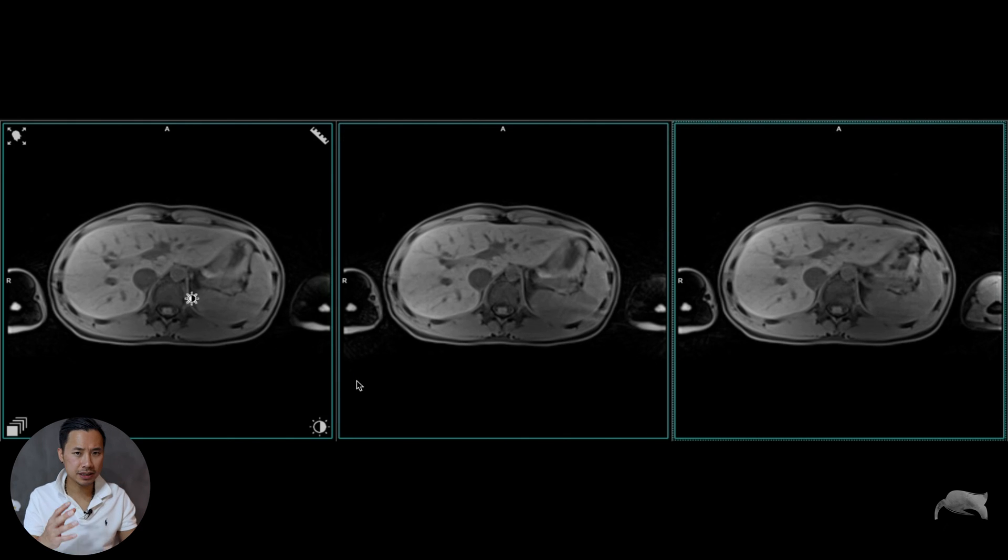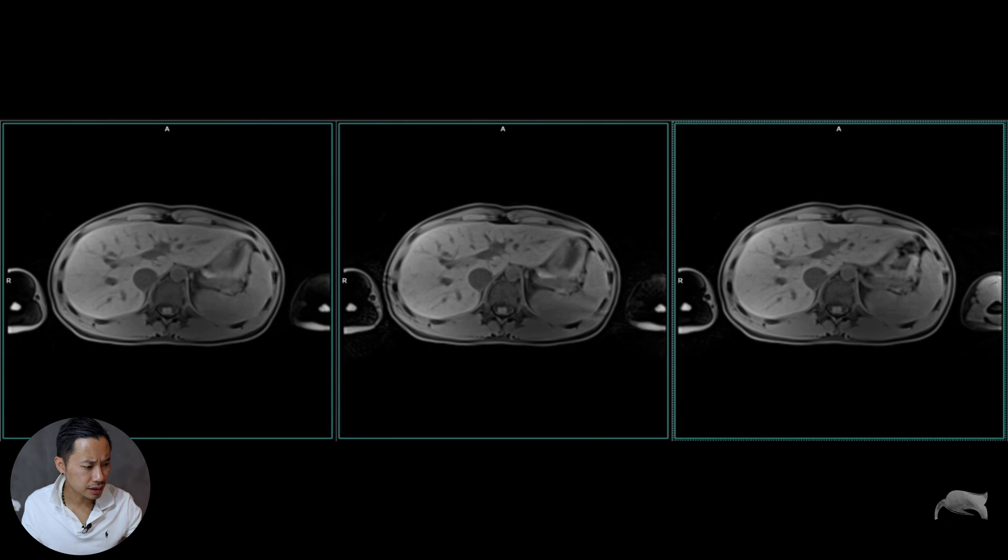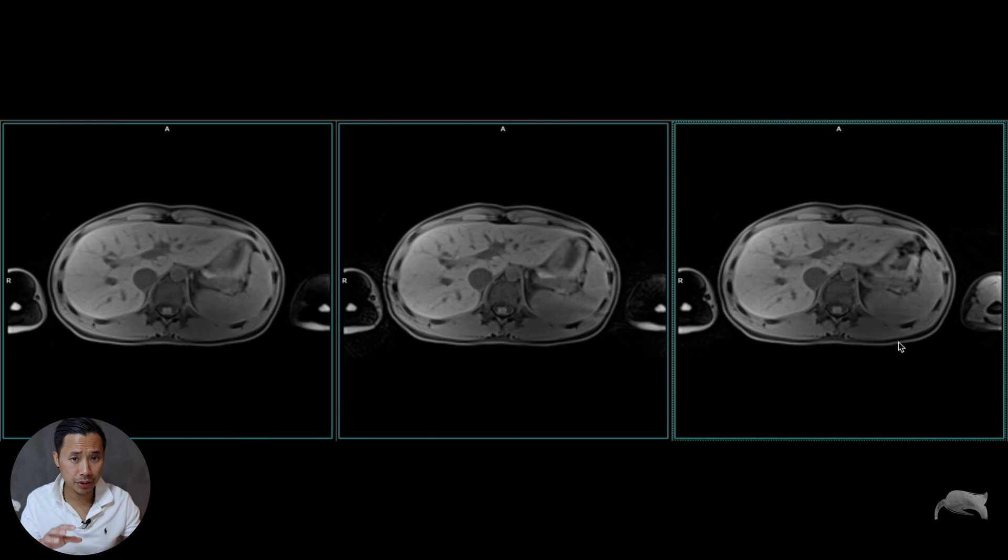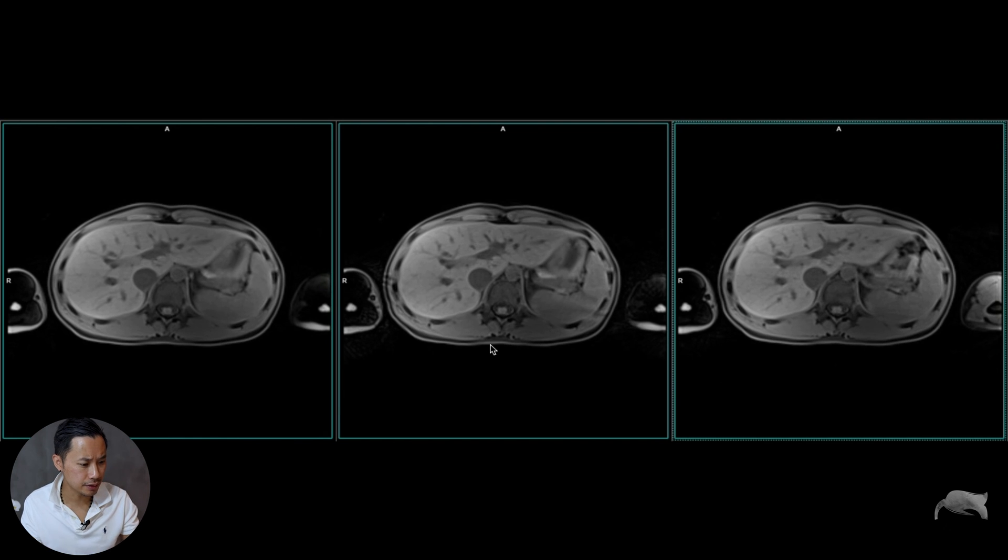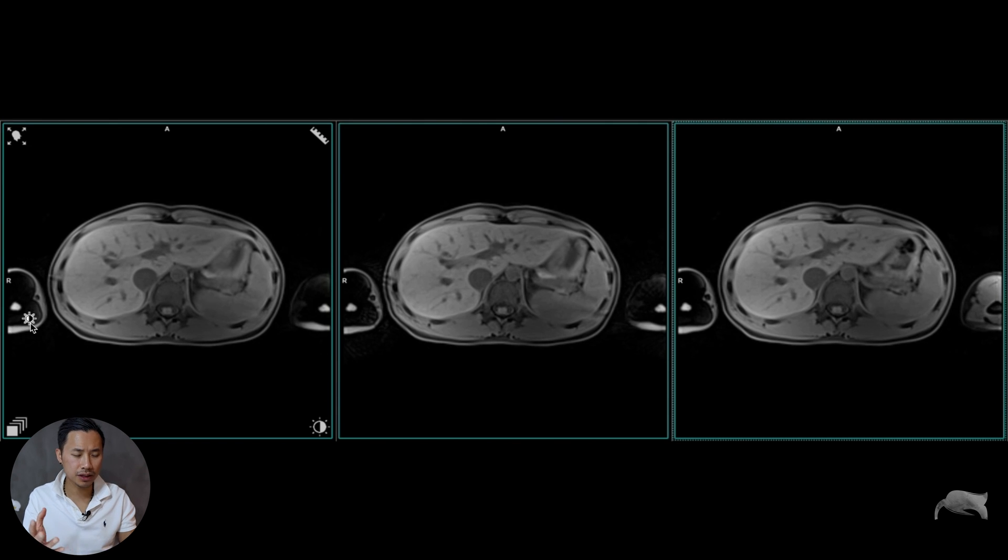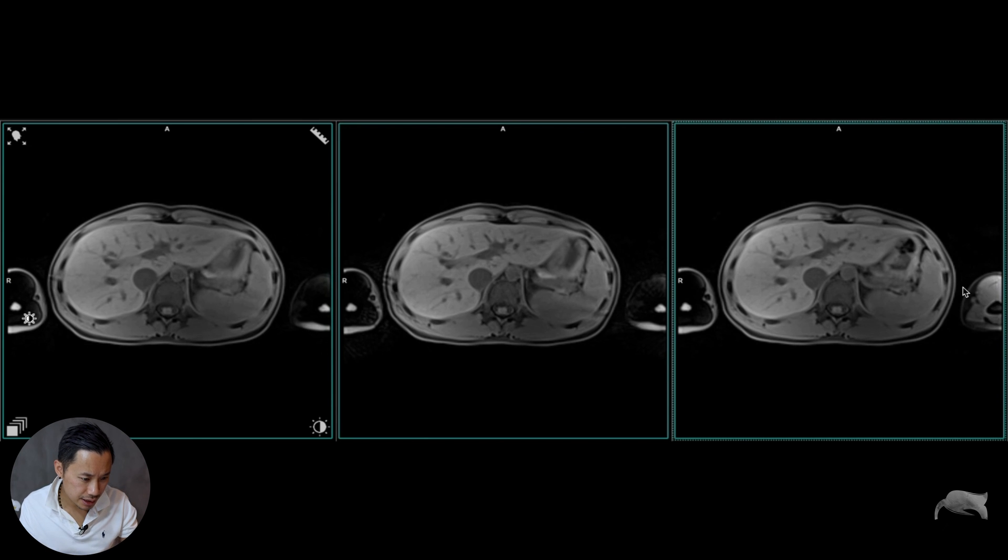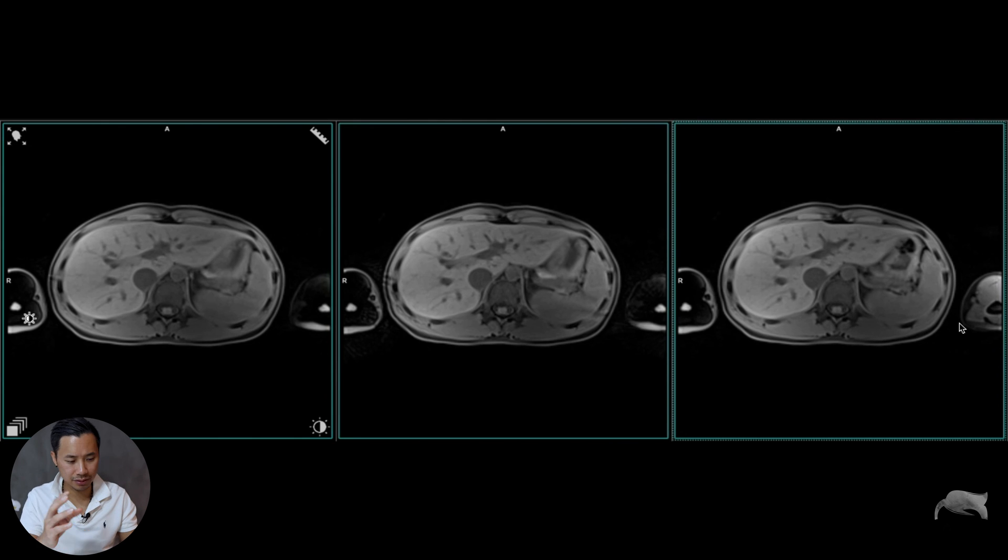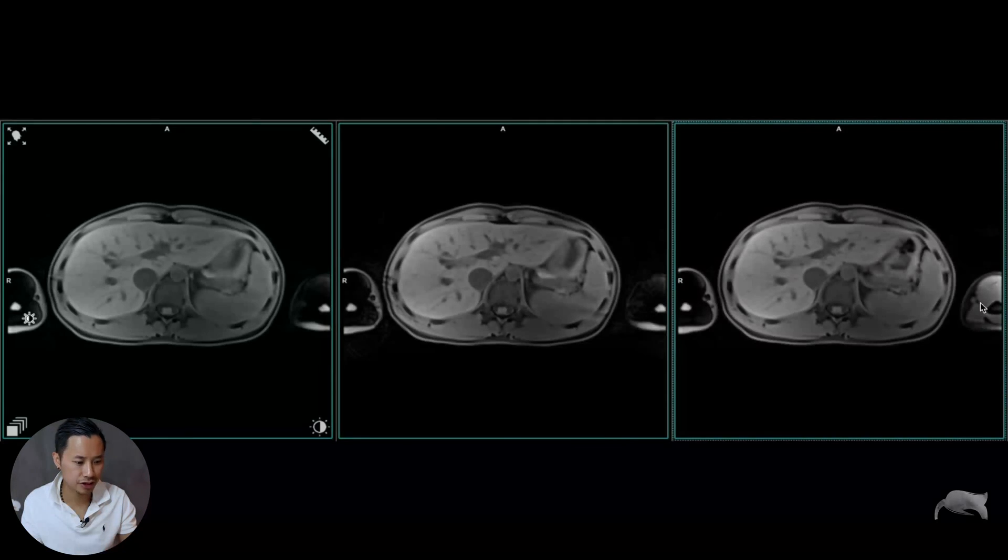This is what makes the sequence very difficult. But nonetheless, this is the method I'm doing per day where I have two saturations next to the liver. There's one last thing I want to tell you - look at the inhomogeneities of the fat saturation right there. It's no wonder because you have a saturation which saturates that area, saturates that hand there and there. Here you can see the fat saturation is still around of course, because both saturations are at this side. There's no saturation on that side.